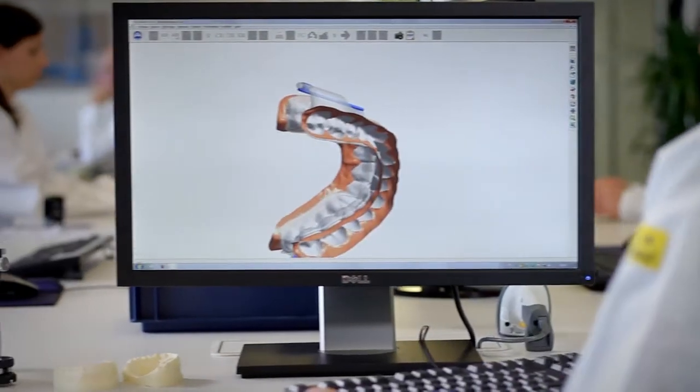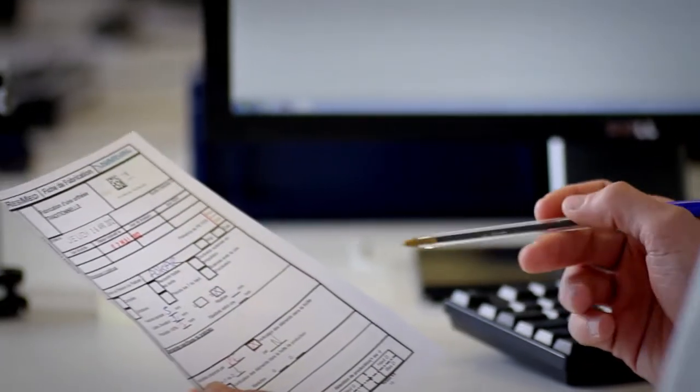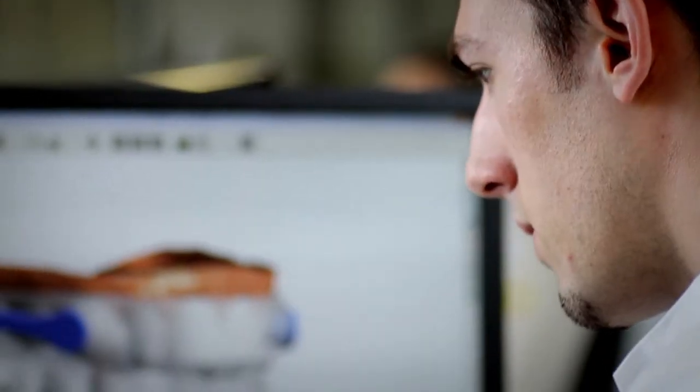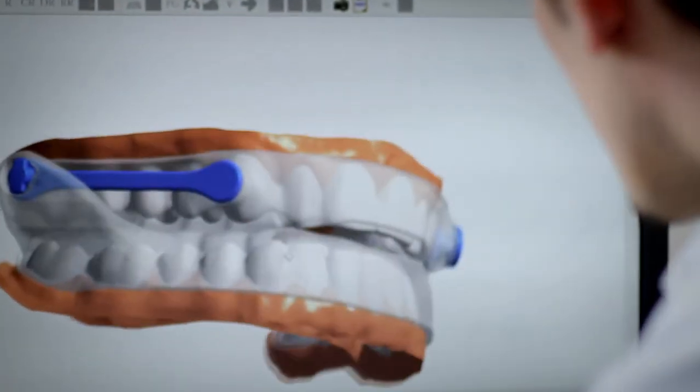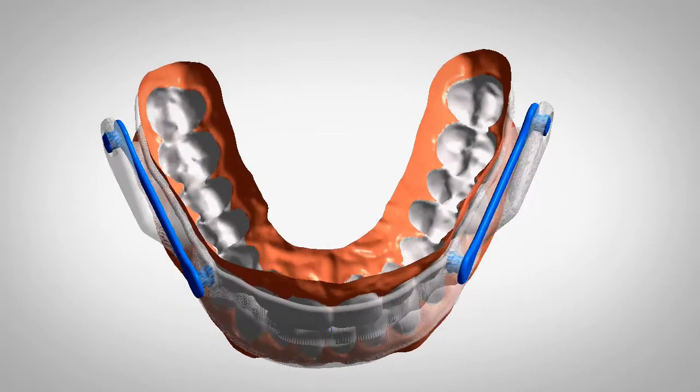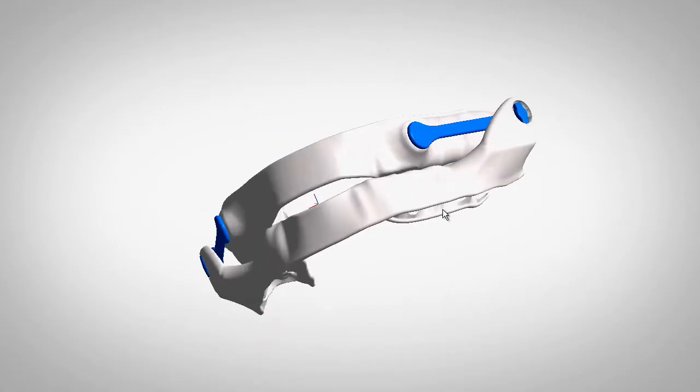Skilled CAD specialists will now design the device suited to the individual needs of your patient, and to your specific prescriptions. Unique proprietary process allows us to adjust the design of the device according to your preference, in terms of retention, design and coverage.